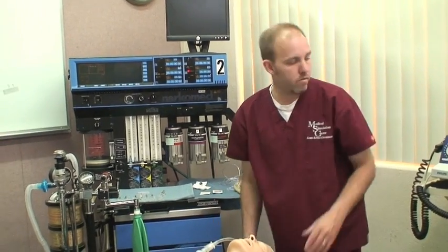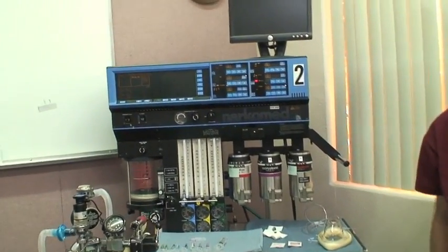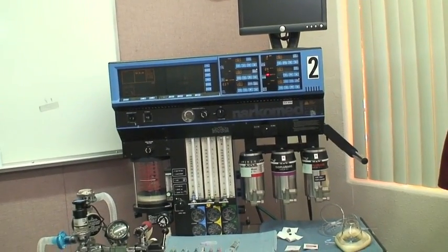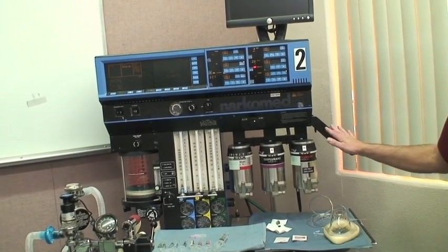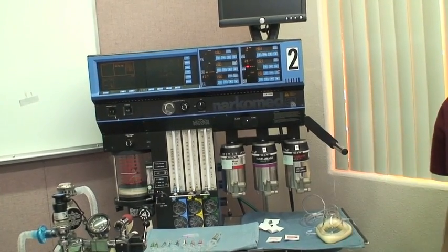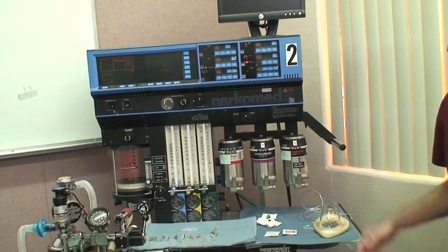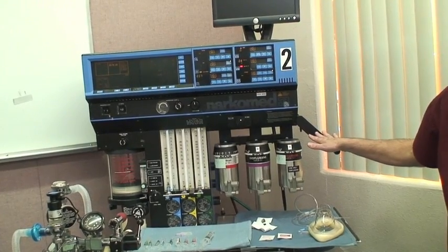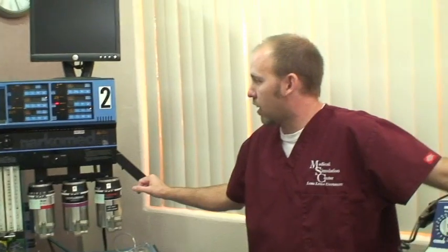The equipment behind would be the same as they would have in an operating room for anesthesia, with the exception of being a little bit outdated. Anesthesia likes to have this machine here because you never know what you're going to run into outside of Loma Linda. So they have the residents, their students, come through and actually get a chance to use a machine that maybe they're not comfortable using on the floor but may run into elsewhere.